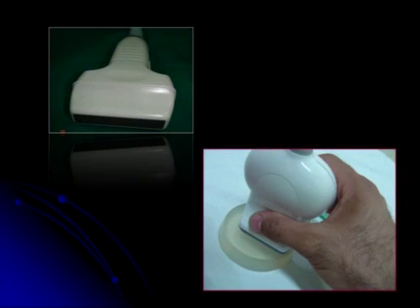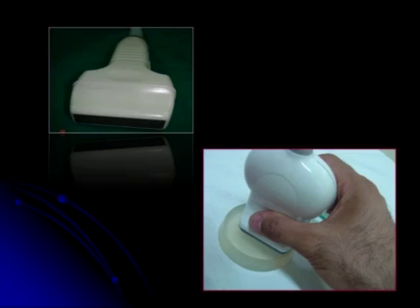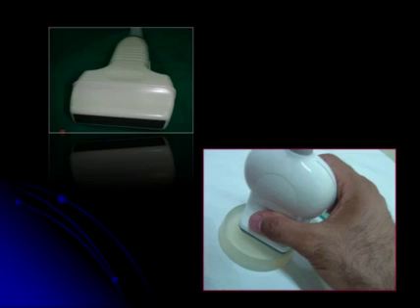Here are two examples of linear transducers. The second transducer with the gel pad is a 3D transducer.